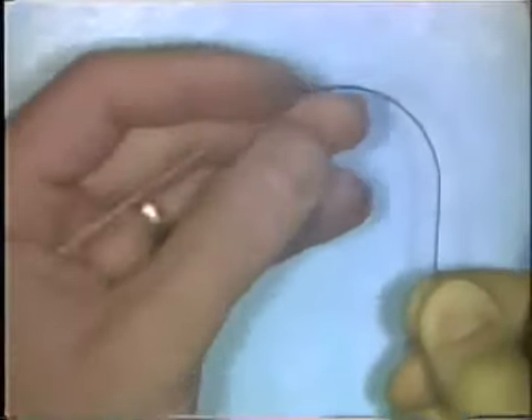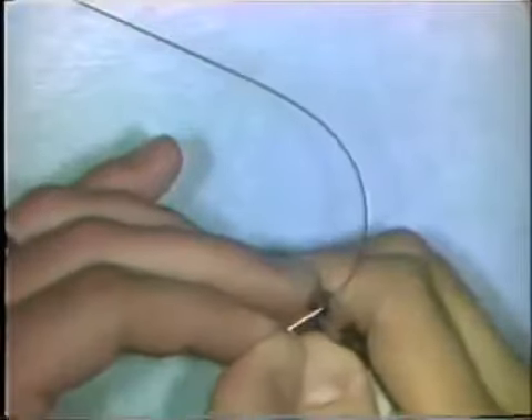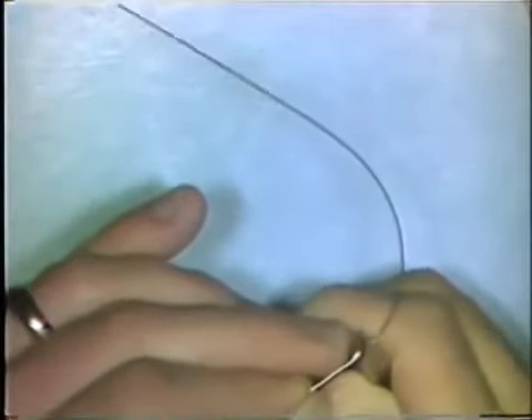After you've done this, you can adjust the curve using the method of flattening the wire with the base portion of the plier, or adding small bends as needed to adapt it to the labial surfaces of teeth or to the pattern that you want to adapt the curve to.